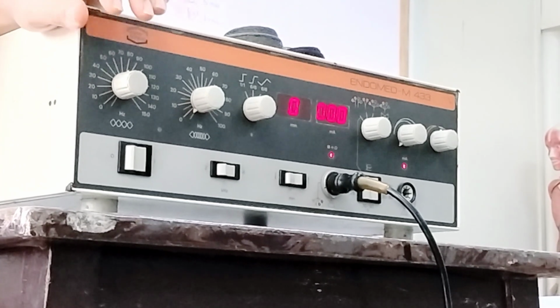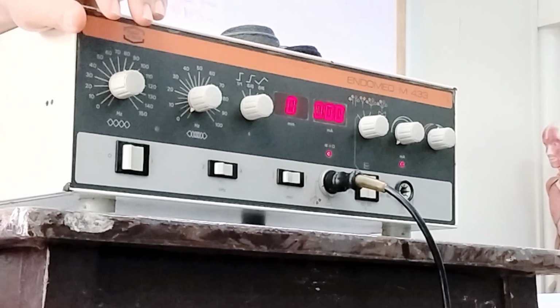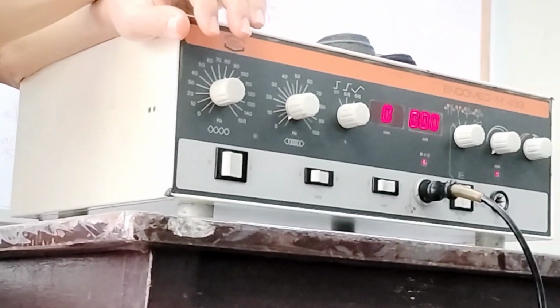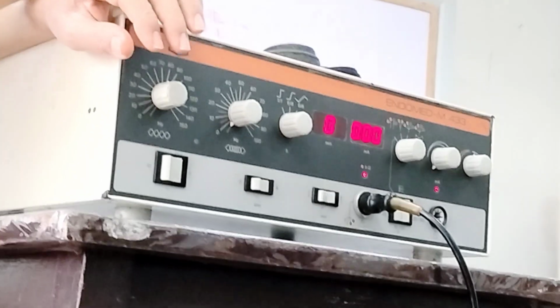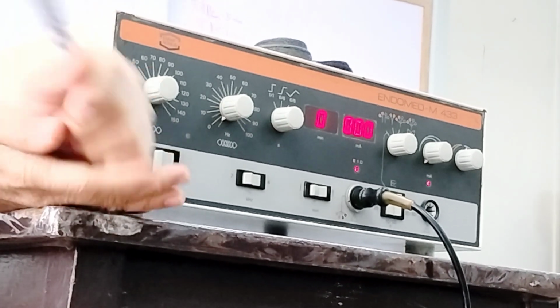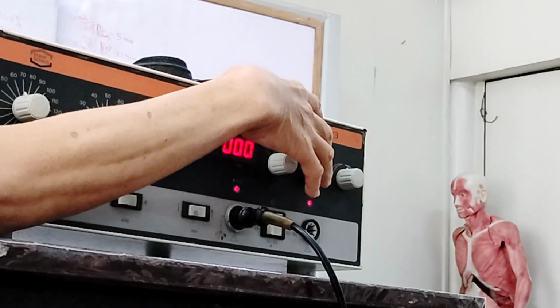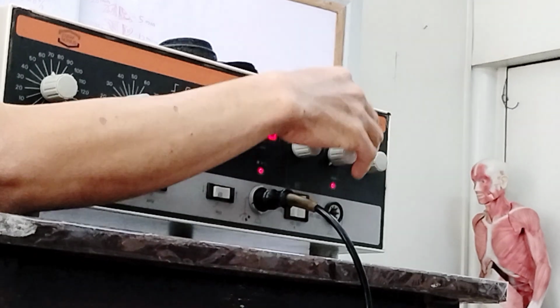Or on the back, if you ask which area on the back is painful, the patient says the entire back. So therefore you just have to use the scanning, or vector scan. This is what we call the dynamic type of interferential. Okay, questions? If the patient can localize the pain, you can just use the quadrupolar without vector scan.